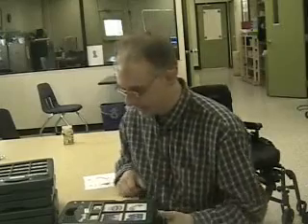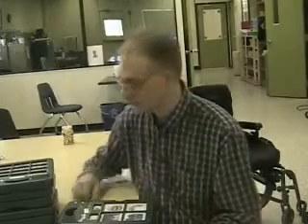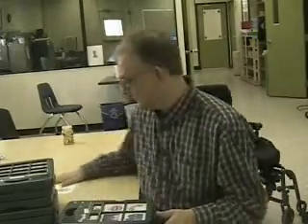Hello, I'm Dan Dage. Here I am again, hopefully in a little higher resolution this time since I'm using a real video camera and not a webcam. I want to talk to you a little bit about communication boards, specifically the GoTalk series.